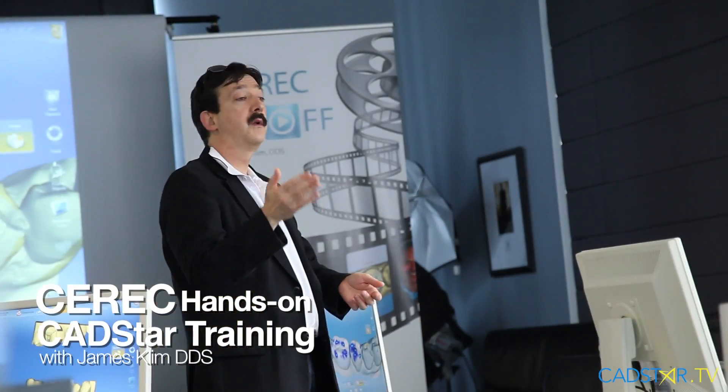It's a wonderful polisher, something I couldn't live without, and it's what I use every day in my CEREC Clinical Theater here at my practice and also in my teaching experiences at my center.